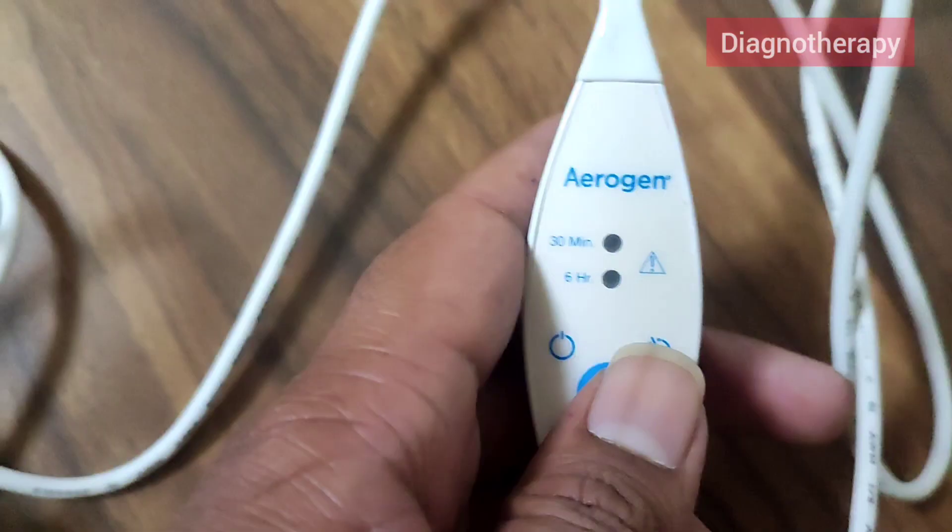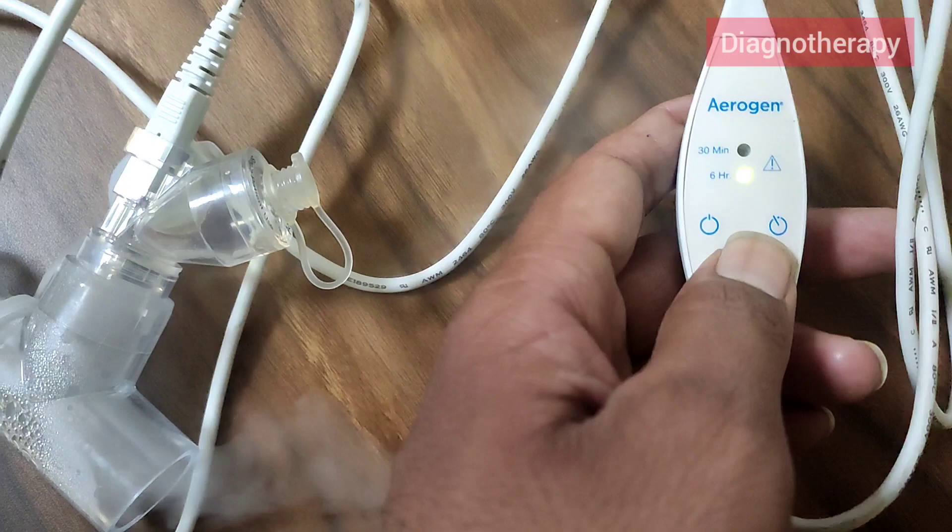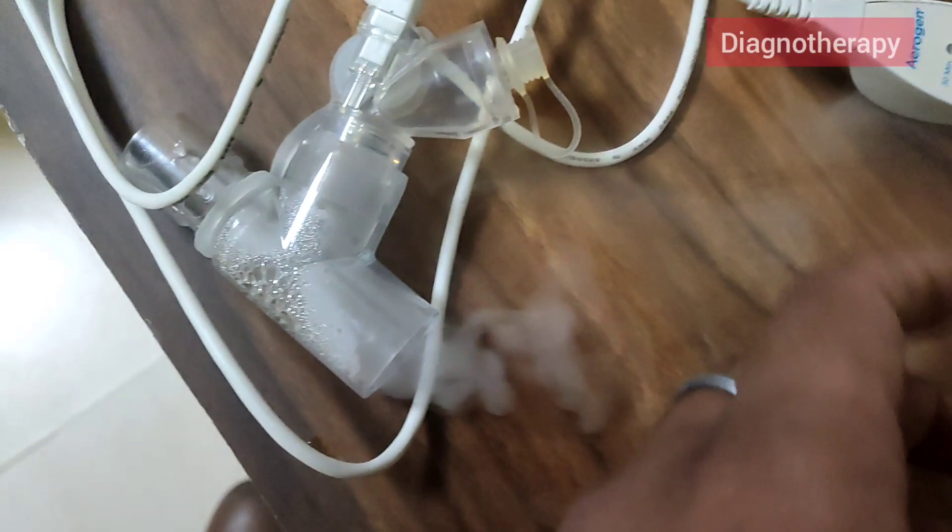The blue button is the on button. When we push it once, it will work for 30 minutes. When we want to switch to six hours mode, with the device initially on, you need to press it longer so it goes to six-hour mode. Power can be given by adapter or a USB connection from the back side of the ventilator.